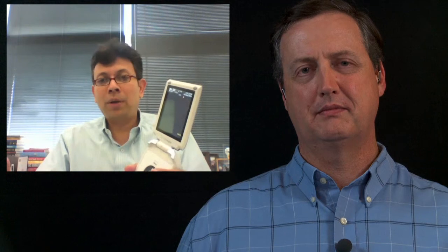We're also thinking of taking this device and making it even more miniature. Yeah. And this is still, it's great. We're happy, but you look at your iPhone and we have a long way to go. You look at the interface here, this interface is, we're happy with it, but still it's not the touch interface that people are used to nowadays. So those are the kinds of things we are putting into this so that consumers and these are not hardcore consumers, these are still trained clinicians in some cases, midwives, for example, people who are not doctors can start using it.